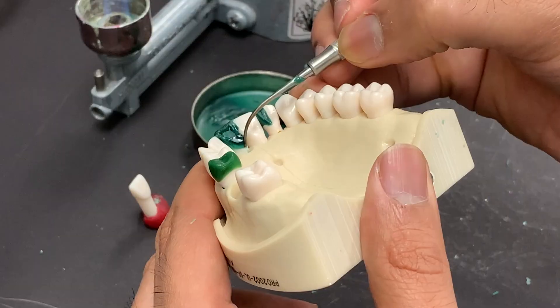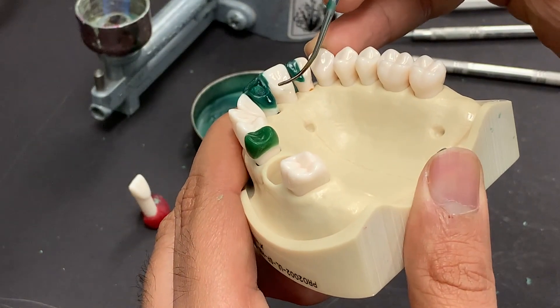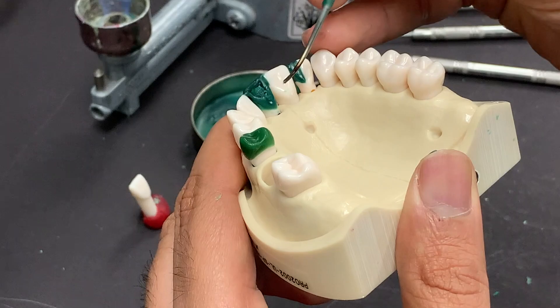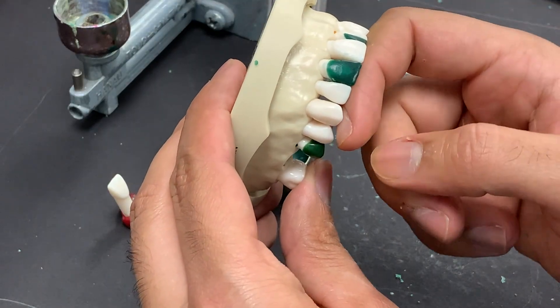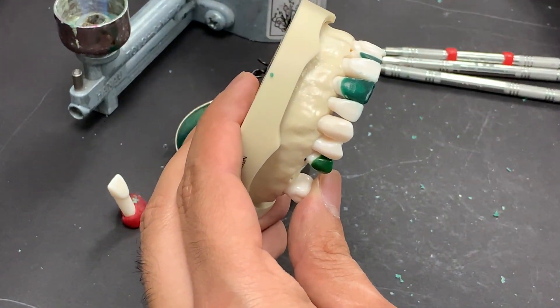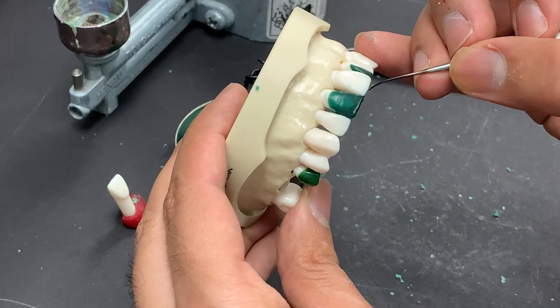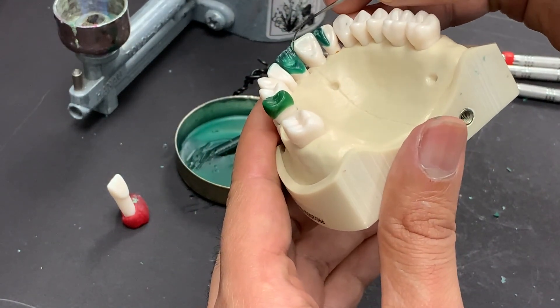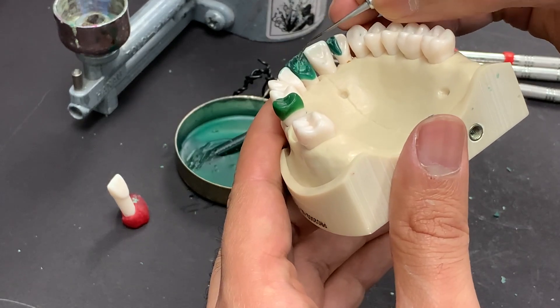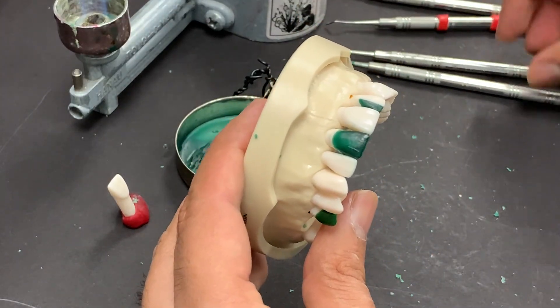Now we've created all our line angles and marginal ridges. Keep the cingulum at the same level as the adjacent tooth and take out excess wax as needed. We have our facial surface with two line angles — straighter then rounded on the distal, with a rounded incisal flat and 90 degrees on the mesial. On the palatal, we've carved out the marginal ridges and cingulum; now we'll fill in the lingual fossa and finish with the cingulum.